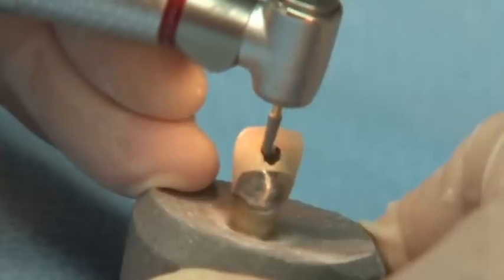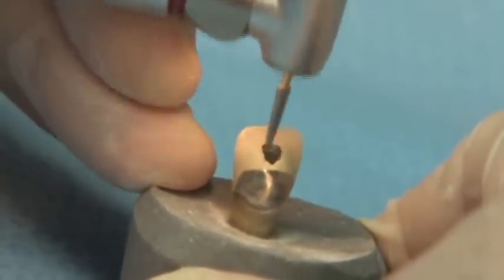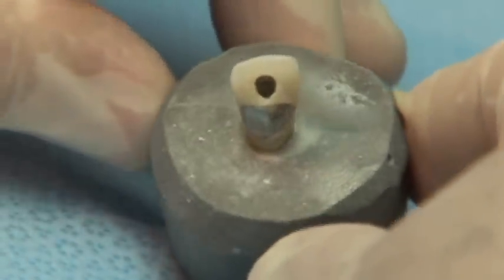If your goal is to complete the required preparation with speed, precision and accuracy without vibration or chatter, Great White is the burr for you.